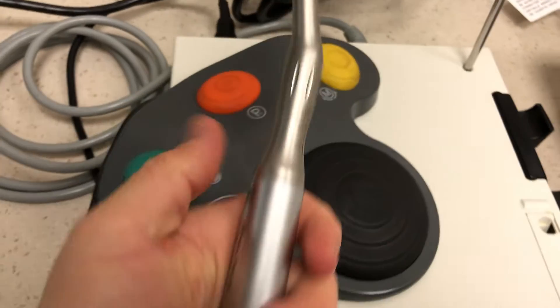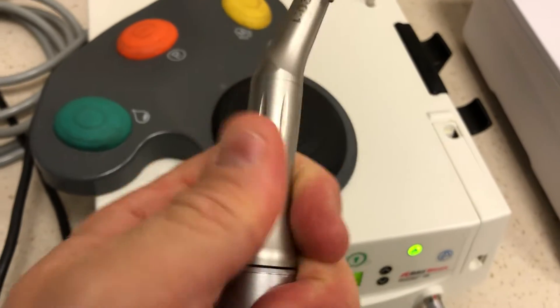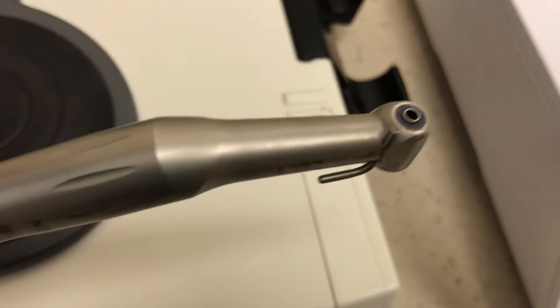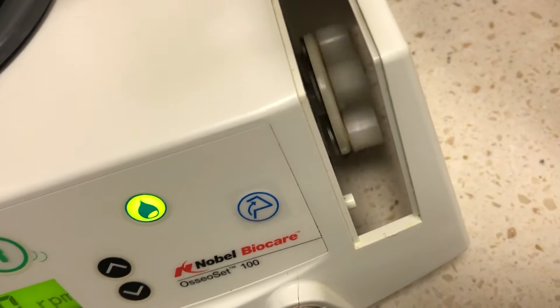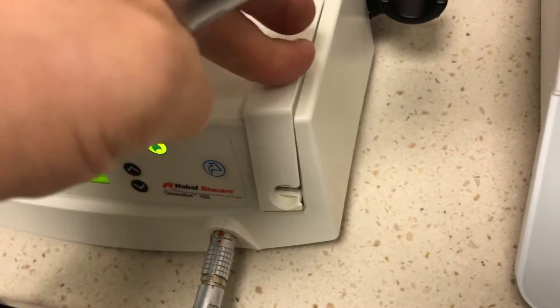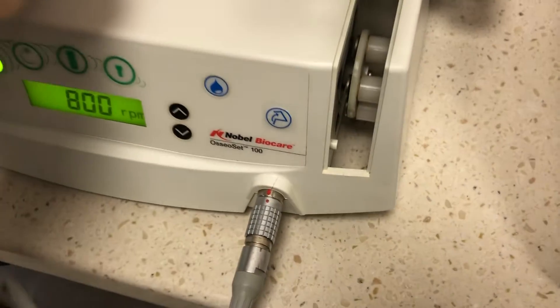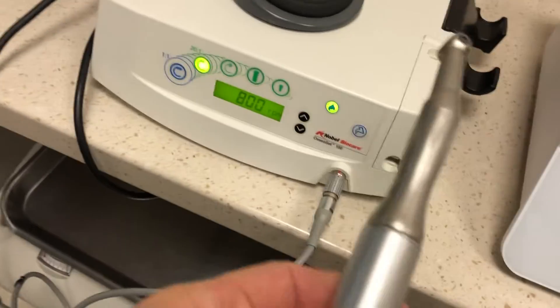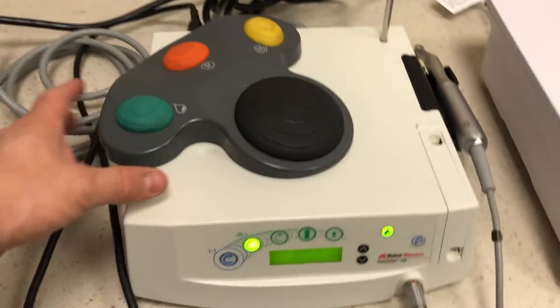Let's give this a try. This is the motor — again, W&H, made in Austria, labeled Nobel. The coupling is like an NSK type coupling. If we start this off, you can see it's turning; the motor is spinning. You have to trust me on that one. And here, you'll notice that thing spins to pump water. Usually there's a tube in here — it gets fed in from the top, comes out the front. If you turn the water setting off, this will not pump. When you turn it on, it'll pump.